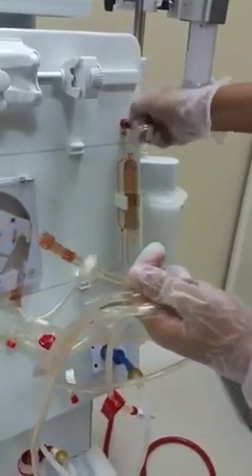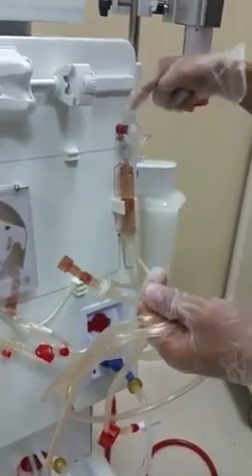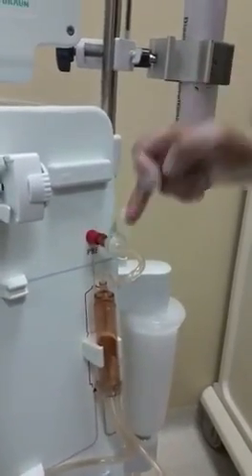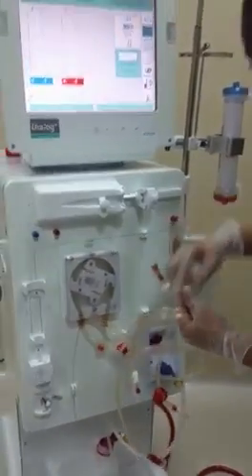Note that the sensor, while putting the sensor into the machine, it should be secured but not too tight and not too loose.